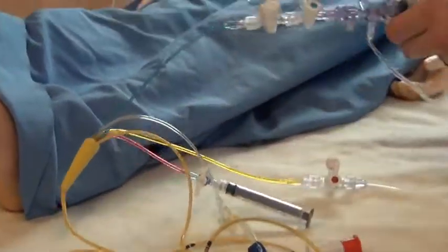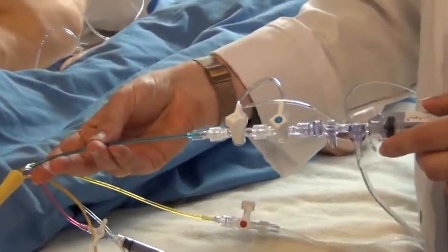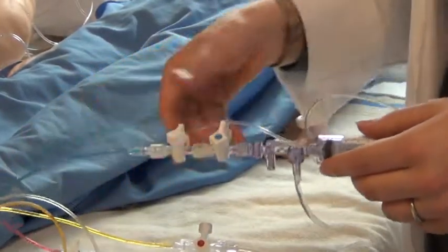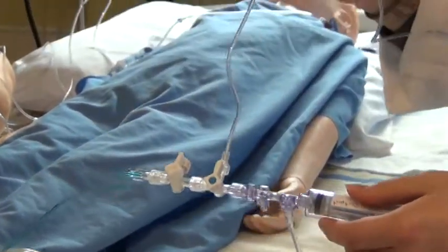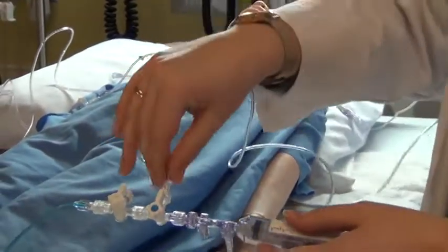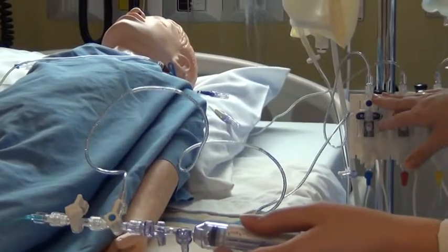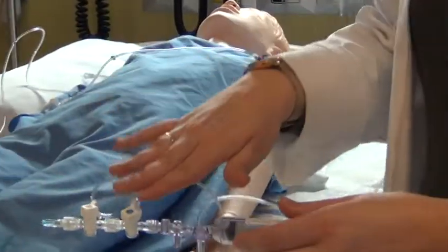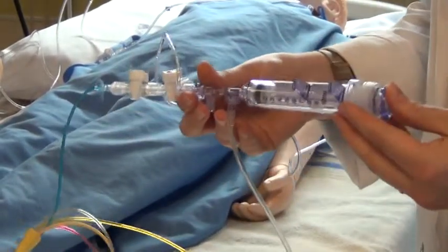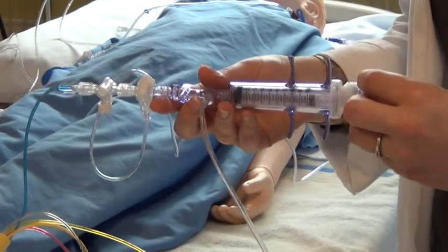The blue lumen is related to central venous pressure. This line has tubing connected to your transducer so you can measure CVP through this device, similar to a triple lumen or other central line. It also accommodates the cardiac output syringe so that cardiac output can be measured.